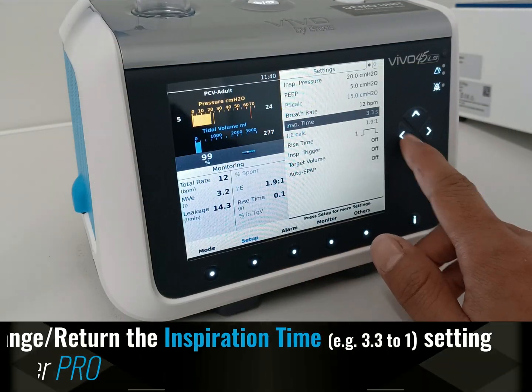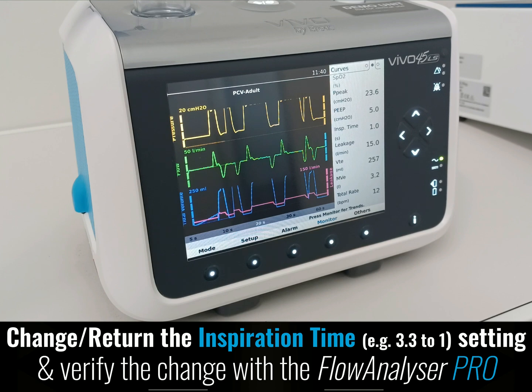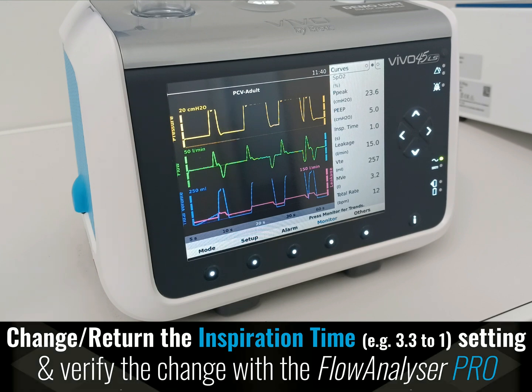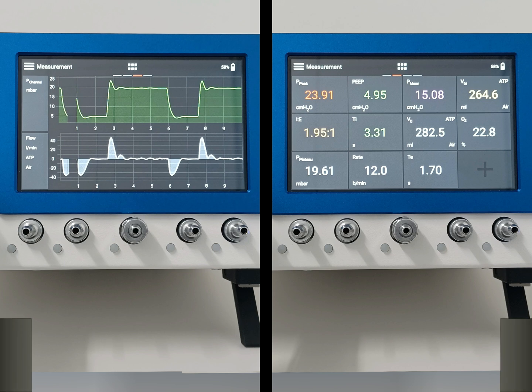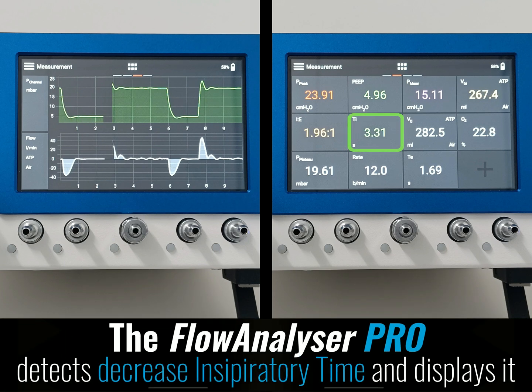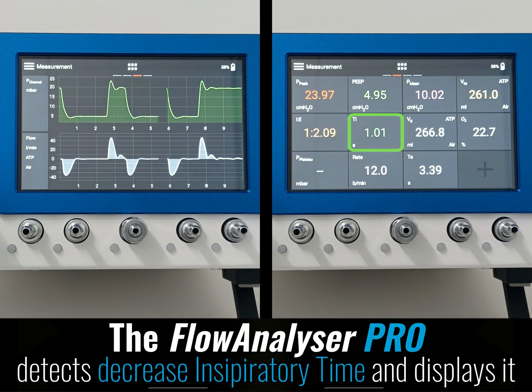Change and return the inspiratory time setting from 3.3 to 1, and verify the change with the analyzer. The Flow Analyzer Pro detects the decreased inspiratory time and displays it.